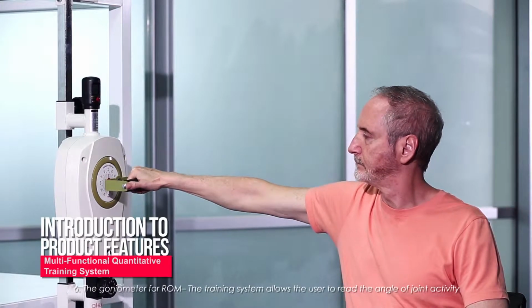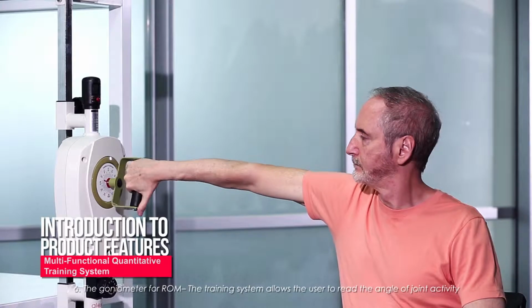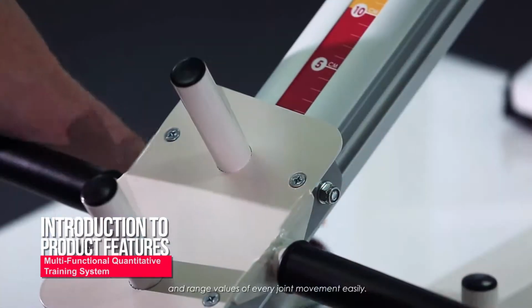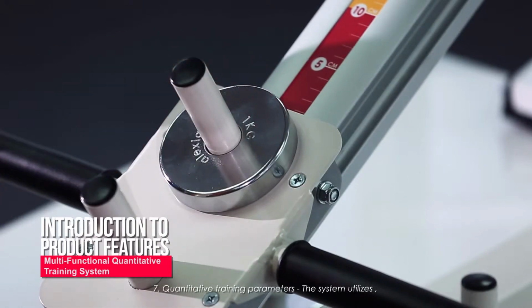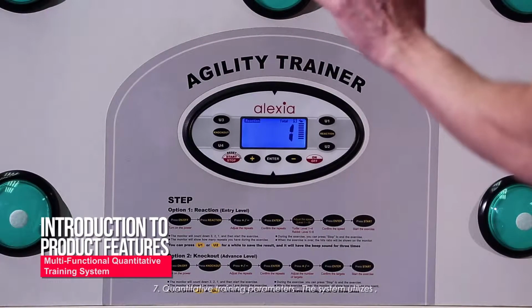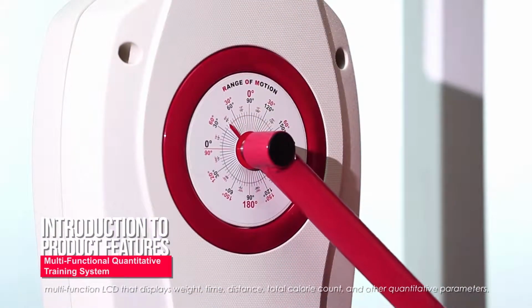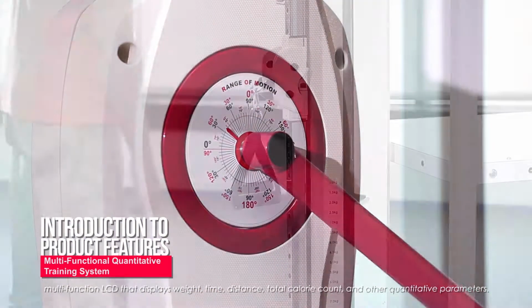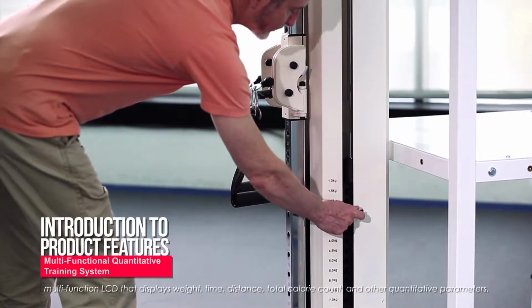6. The goniometer for ROM. The training system allows the user to read the angle of joint activity and range values of every joint movement easily. 7. Quantitative training parameters. The system utilizes a multifunction LCD that displays weight, time, distance, total calorie count, and other quantitative parameters.